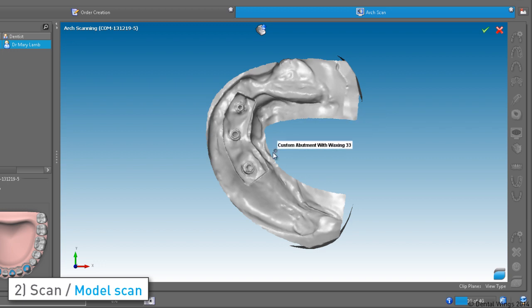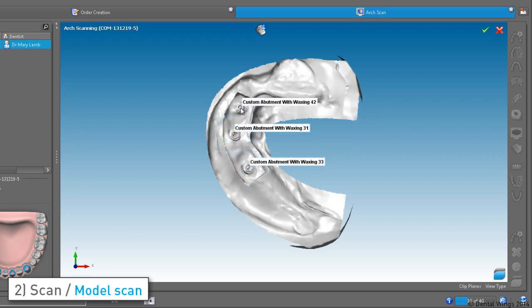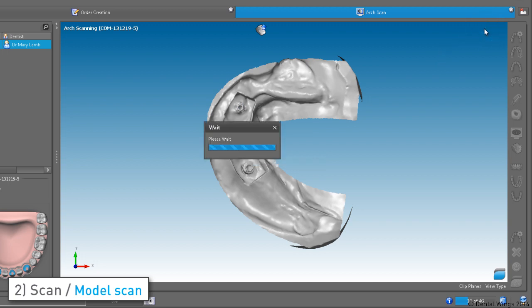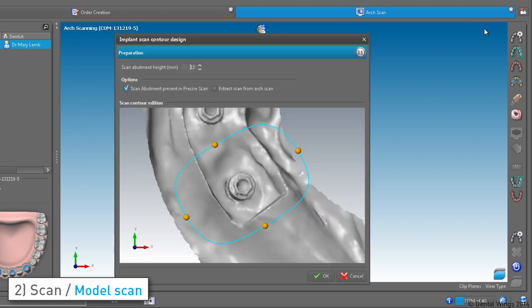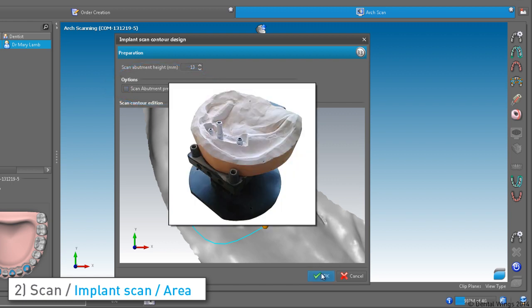Then we assign implant locations. This dialog will pop up for you to define the precise scan area around the first implant. We unchecked this box as there was no scan jig during the model scan. Place the scan jig on the model and click OK.